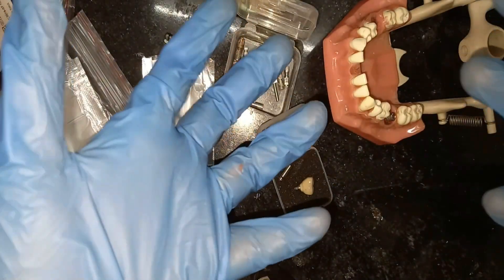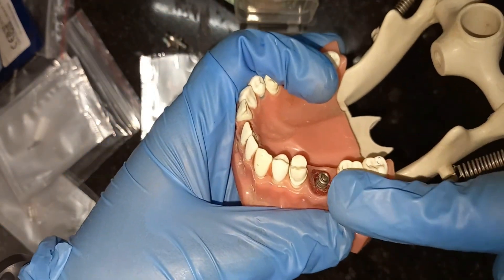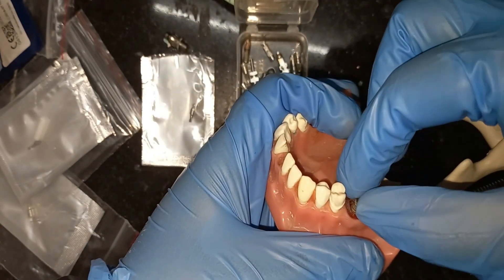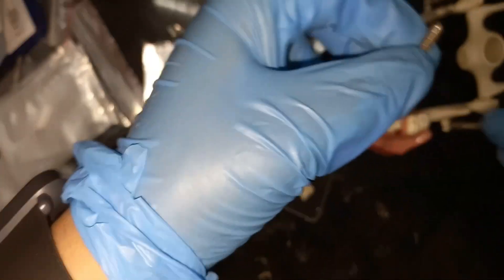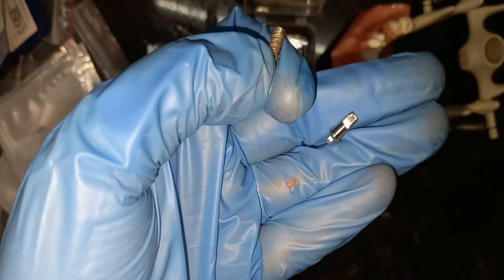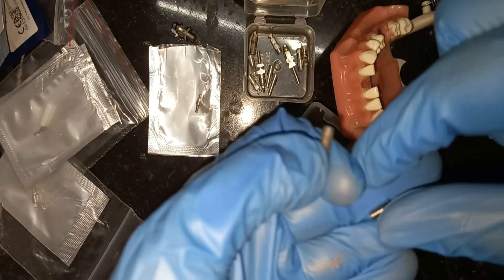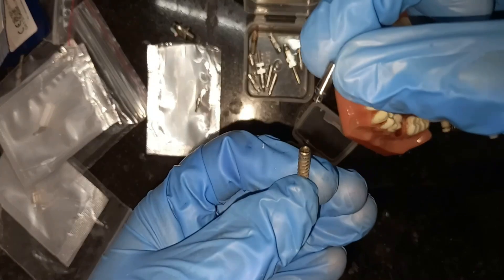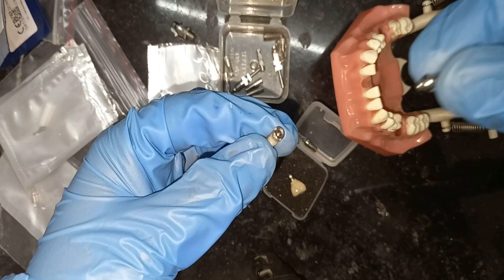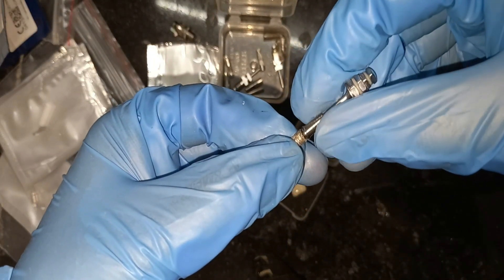First of all, what is an abutment? So look at the video — this is an implant, as we all know. I have already discussed about the implant in my previous video, so if you want to know about the implant you can watch that. This is the abutment — this is a cement retained abutment. It is a connecting piece that joins the prosthesis to the implant. It connects the crown to the implant.